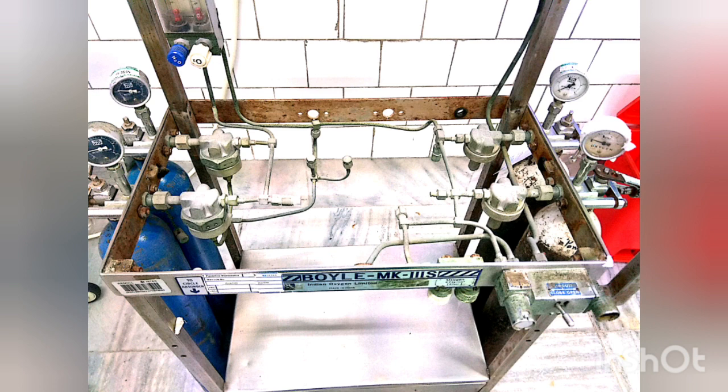In newer machines, there are second pressure reducing valves which reduce the pressure further to 15 to 25 psi. It is important to note that a central pipeline supply of gas has 50 psi of pressure. So there is a preferable use of pipeline supply even if backup cylinders are open, unless the central pipeline pressure falls below 45 psi — that is, below the backup cylinder pressure.